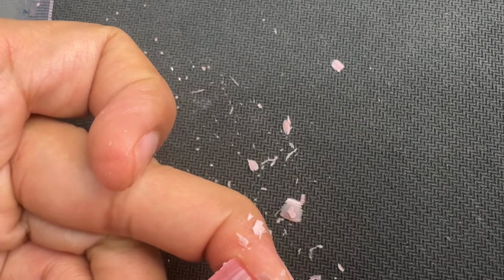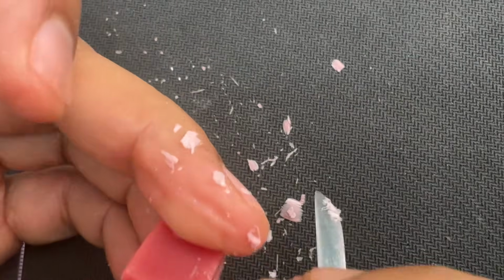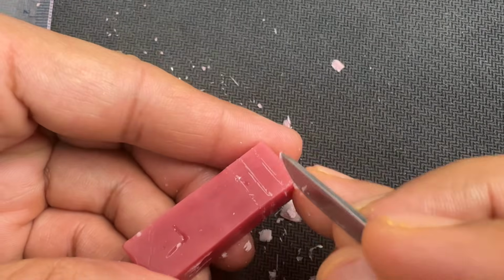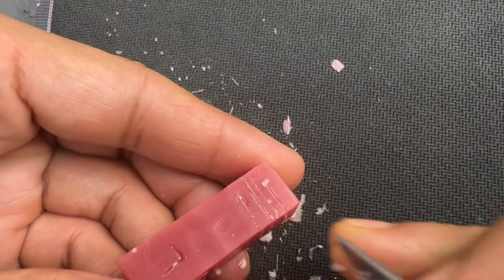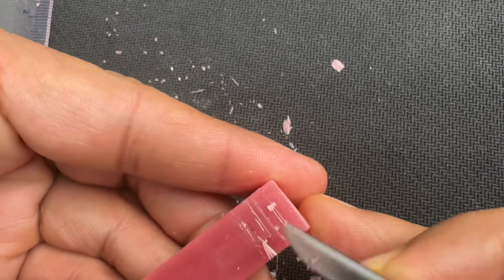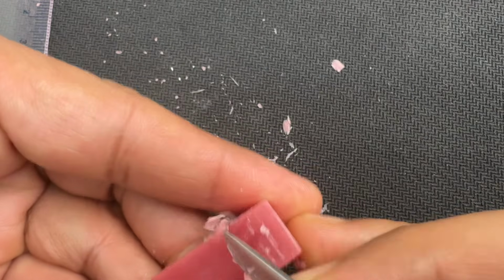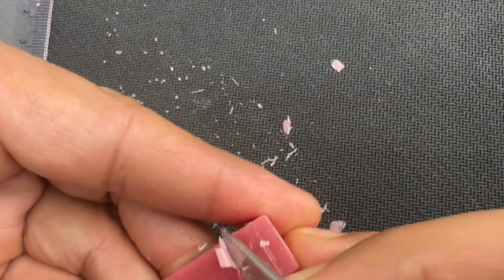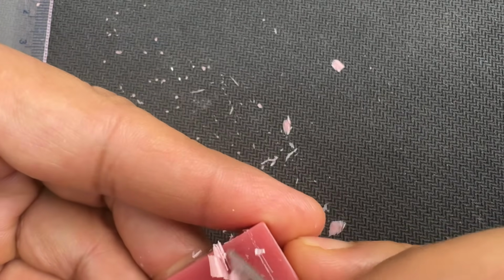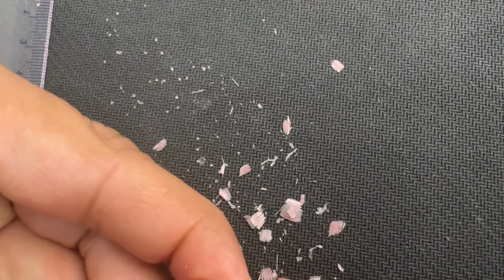Once I'm done and happy with the buccal crest of curvature, just go and check on the lingual side. So lingual side, it is the middle of the middle 1/3. So here, you can draw the line and then remove a layer of wax on either side of that line. You all have been doing this carving, establishing the crest of curvature for maxillary molar, exactly the same as that for mandibular molars as well.